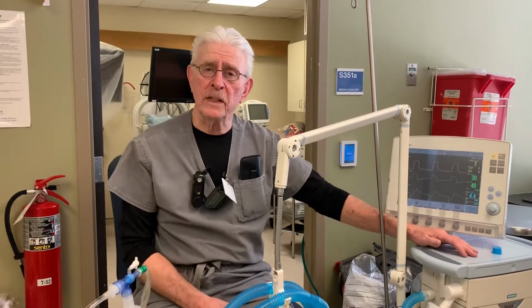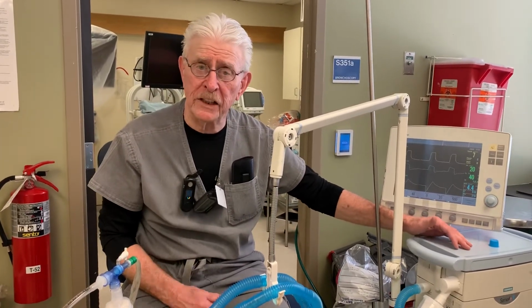Hello, I'm George. I'm from the respiratory department. I'm going to go over mechanical ventilation for you.